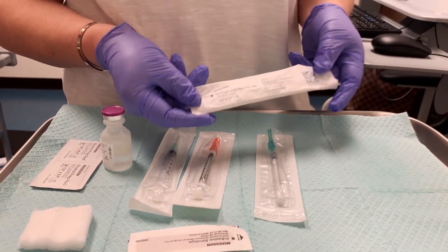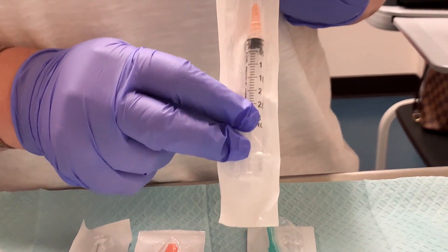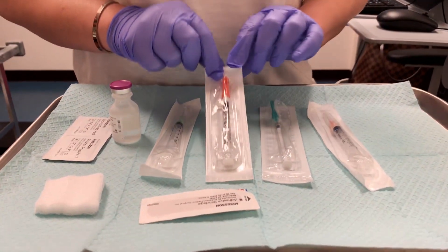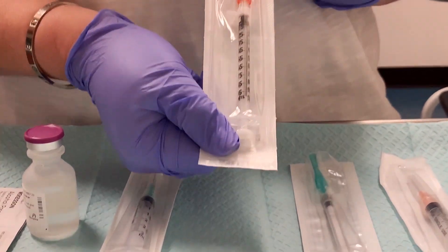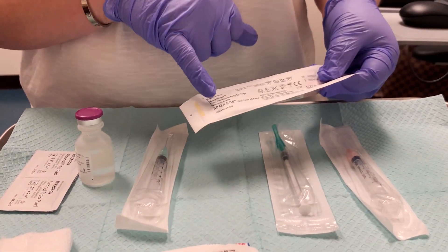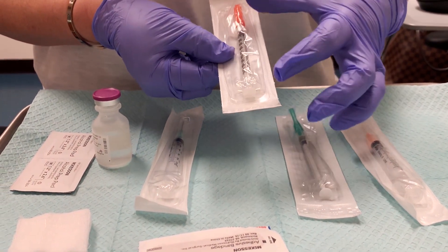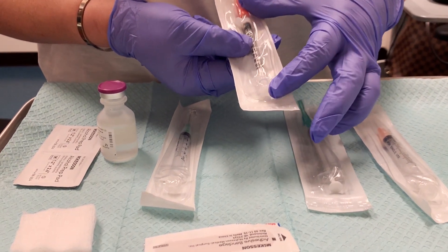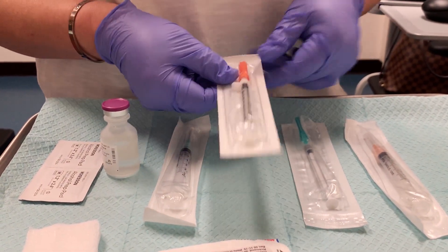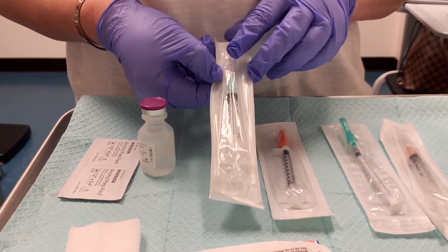This is a 25-gauge 5/8-inch needle attached to a 3cc syringe — we're going to use this one for our subcutaneous injection. This is the appropriate needle size for most sub-Q injections; subcutaneous goes into the fatty tissue, not the muscle. This is an insulin syringe — insulin also goes into subcutaneous tissue, and the needle size is 5/16 inch. It's a 1-milliliter syringe broken down into 100 units, which is how you tell the difference between tuberculin and insulin syringes.